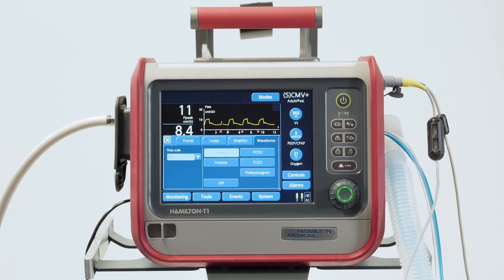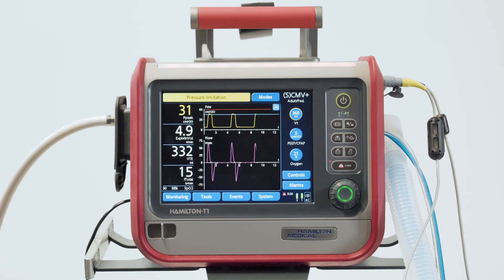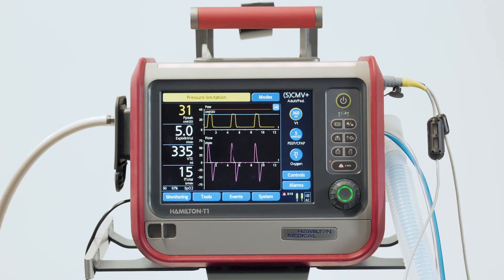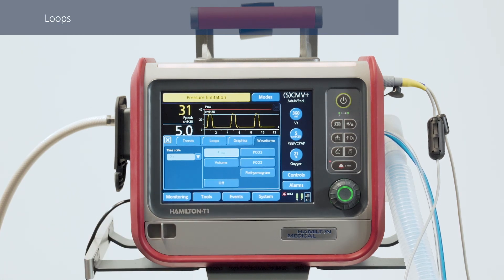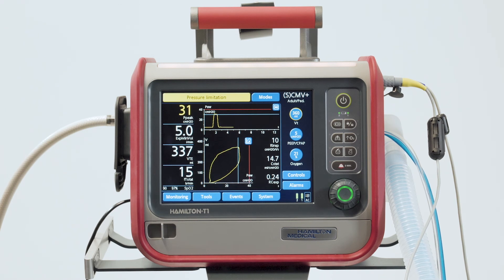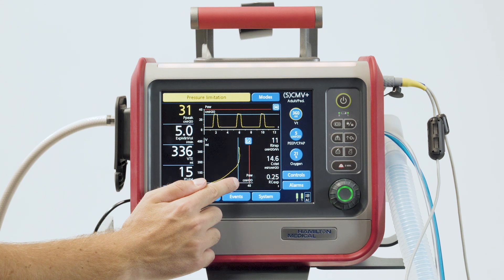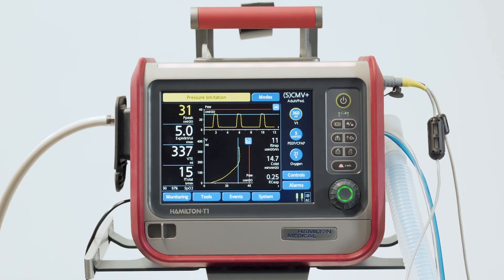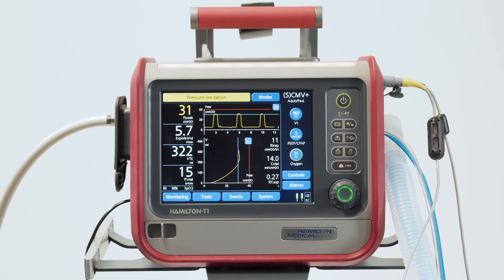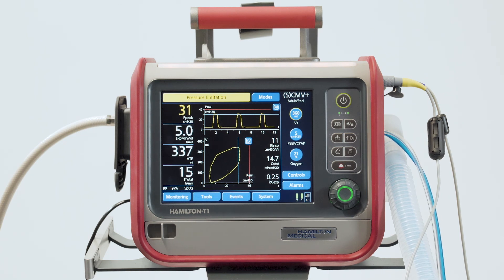Alternatively, you can select one of the four available tabs — trends, loops, or intelligent graphic panels. Each of these offers a different view of the data. Sometimes it's more useful to plot one variable against another one as an XY, or loop display. To display loops, touch anywhere in the graphic area, then touch the loops tab and select one of the available parameter combinations. The pressure-volume loop is displayed with volume as a function of pressure. The red line represents the pressure alarm limit, while the blue one corresponds to the maximum safe pressure we can apply. The slope of this loop is the respiratory system compliance.